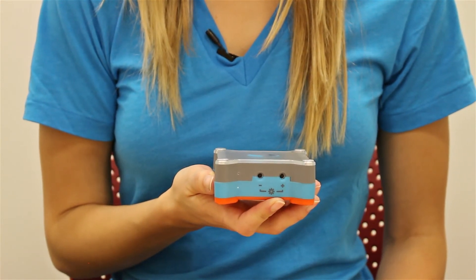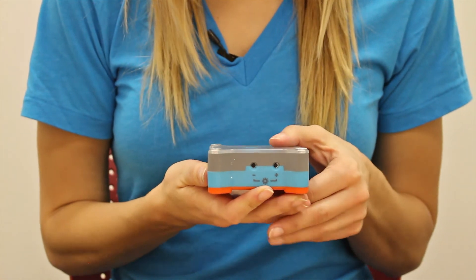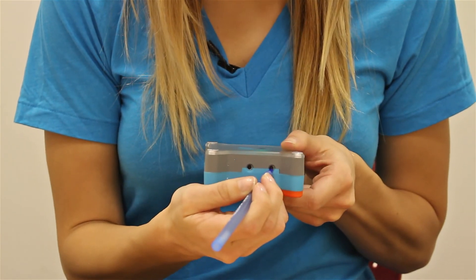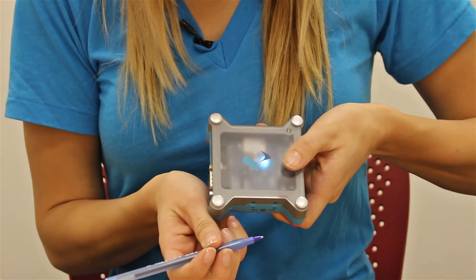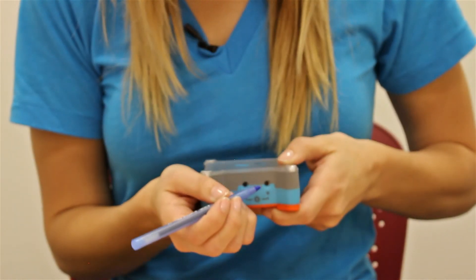To show you how to switch from one mode to the next, depending on your needs, take a look at these recessed buttons here. Since they're recessed, you'll need a pointed object to switch modes — a ballpoint pen works great, for example. Take your pointed object and press it into either recessed button and hold down for a few seconds until the light starts changing color, and then let go. Repeat this until you find the mode you desire. The colors rotate on a looping basis. There is a quick reference guide included in the booklet that you receive with your Tecla Shield if you need more information about the modes.